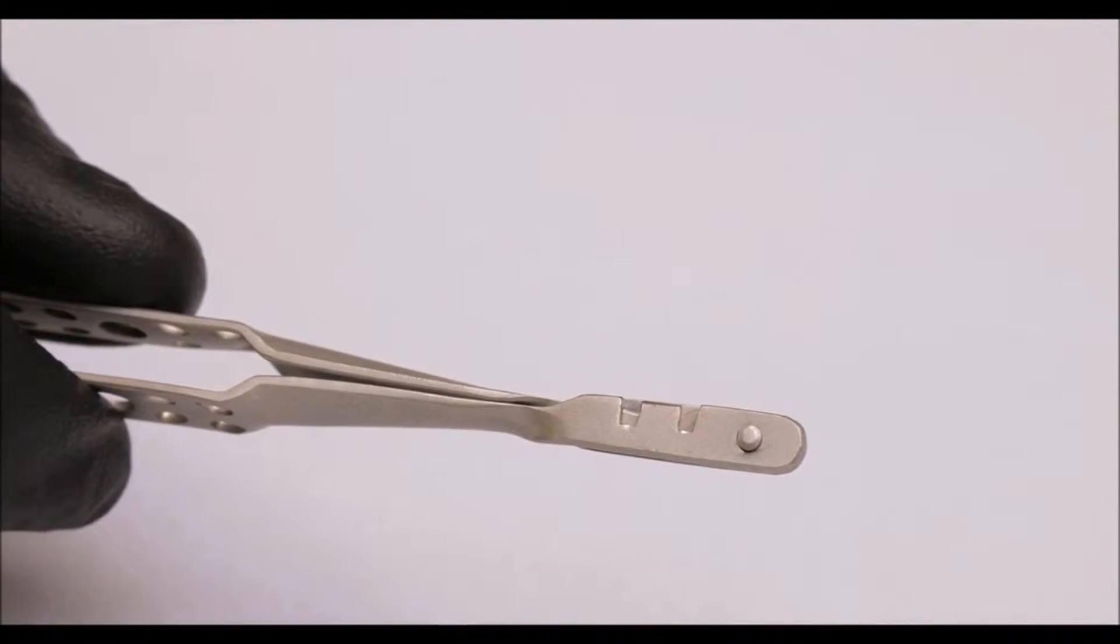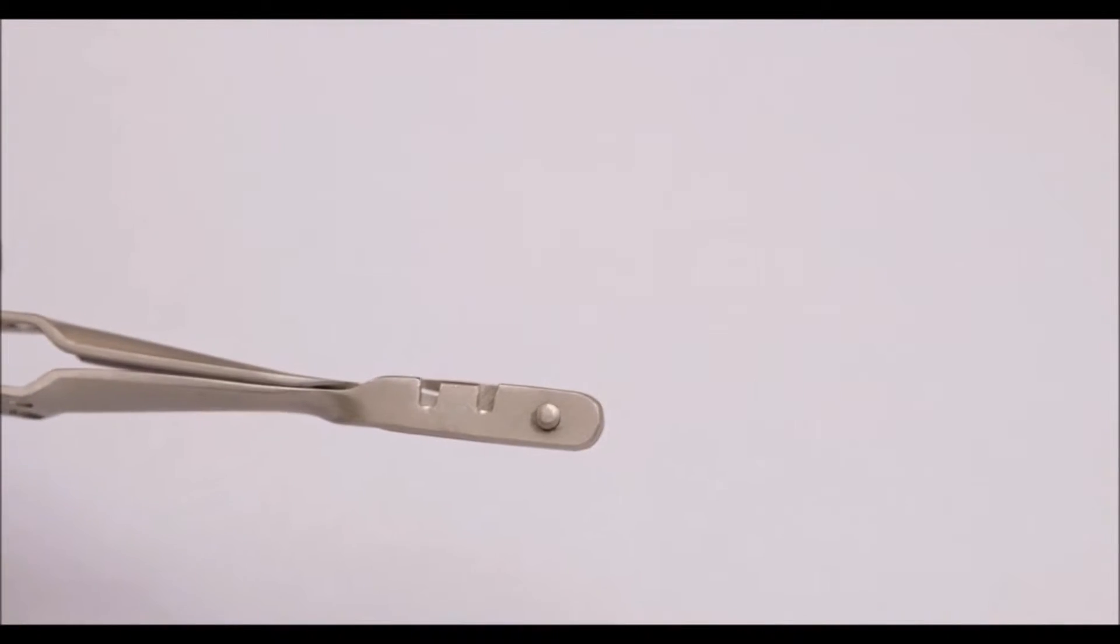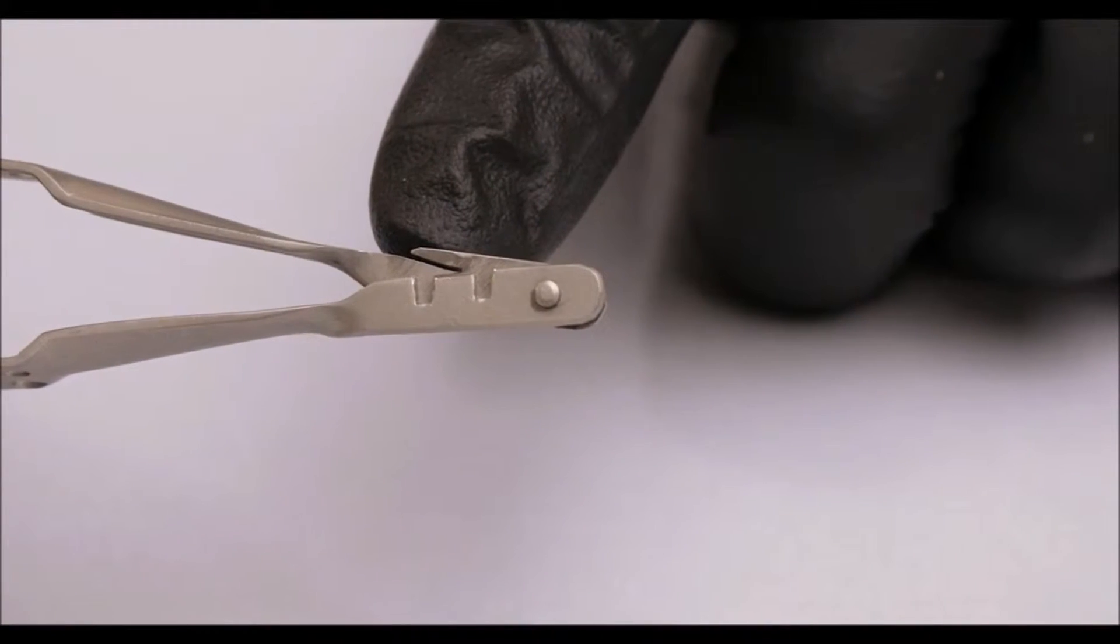Based on the hidden guillotine technology behind Laschal's famed cutting edge needle holder, this unique suture cutter can only cut suture tags and nothing else.